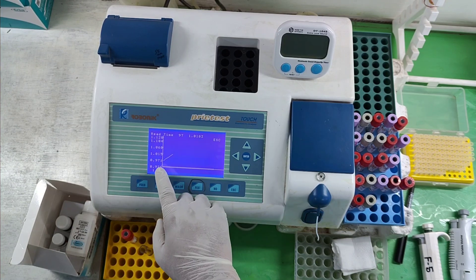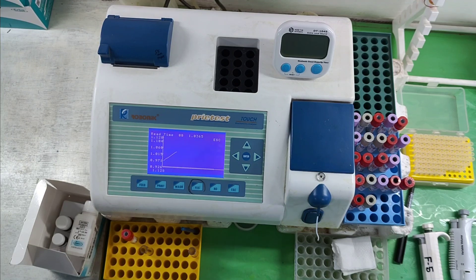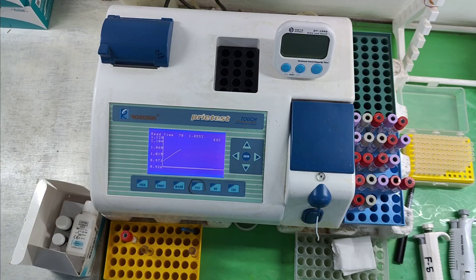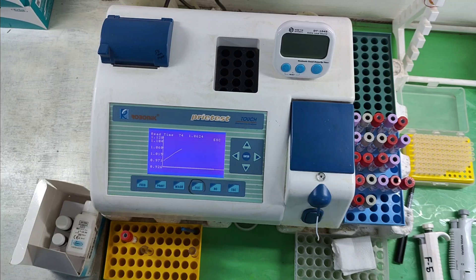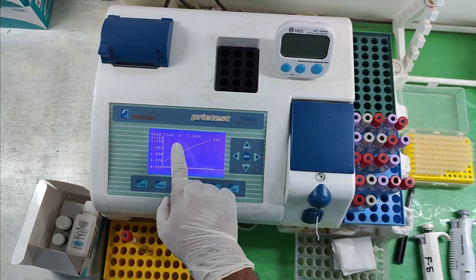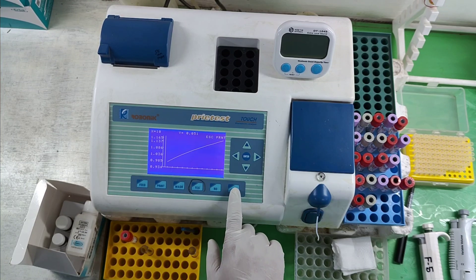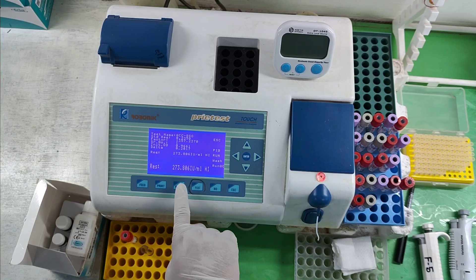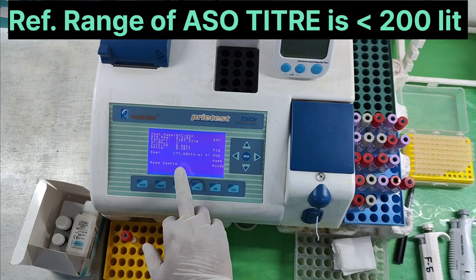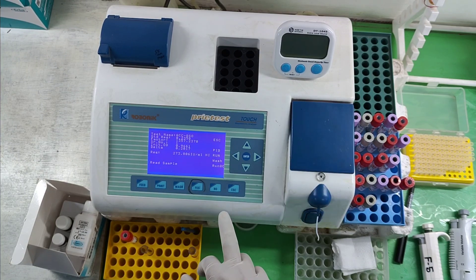Look at the graph — the graph is showing higher and increasing, which means the ASO titer value in this sample is quite high. The read time has 5 seconds left. After the test, press escape. As I told earlier, the normal range of ASO titer is usually less than 200 international units per mL. Here it is showing 273.80 — quite a higher value — that's why the graph is increasing in nature.